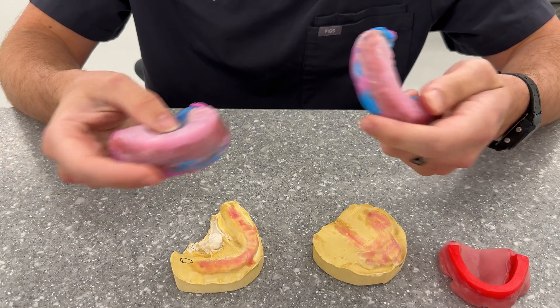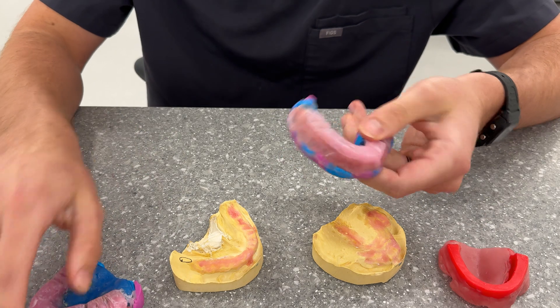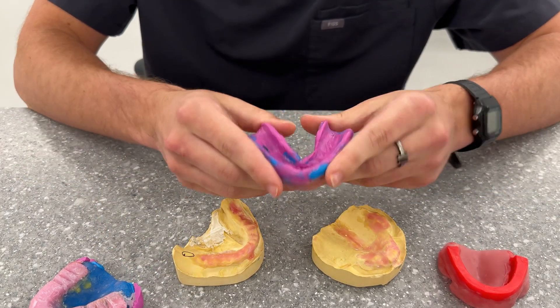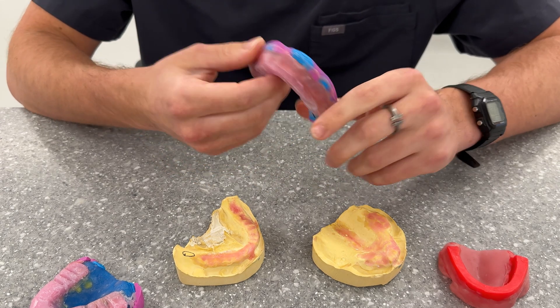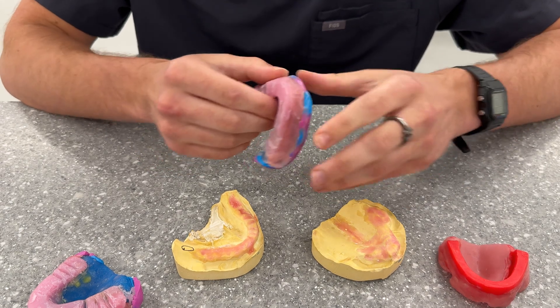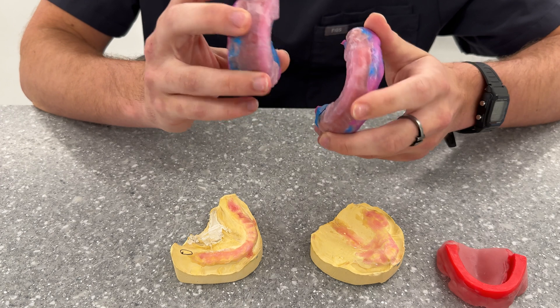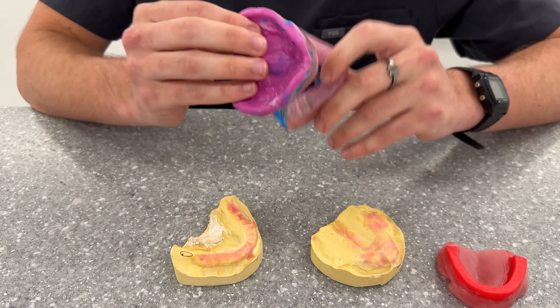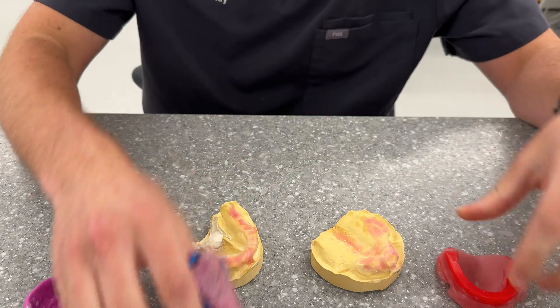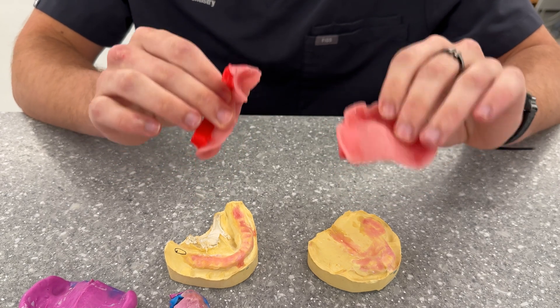Now the process for this — you've just got to think of the why behind it. For a digital denture there's no reason to have a master cast or a record base, because we have our impression right here that we're able to directly scan in. That's the reason for it. If there is a situation where there is a collapsed VDO where the impression material, the custom tray, and the wax rim are all very bulky and too thick for the patient, we would have to do a record base — and we can. But for the majority of cases we're just going to border mold and take the final impressions directly with these wax rims on the custom trays.